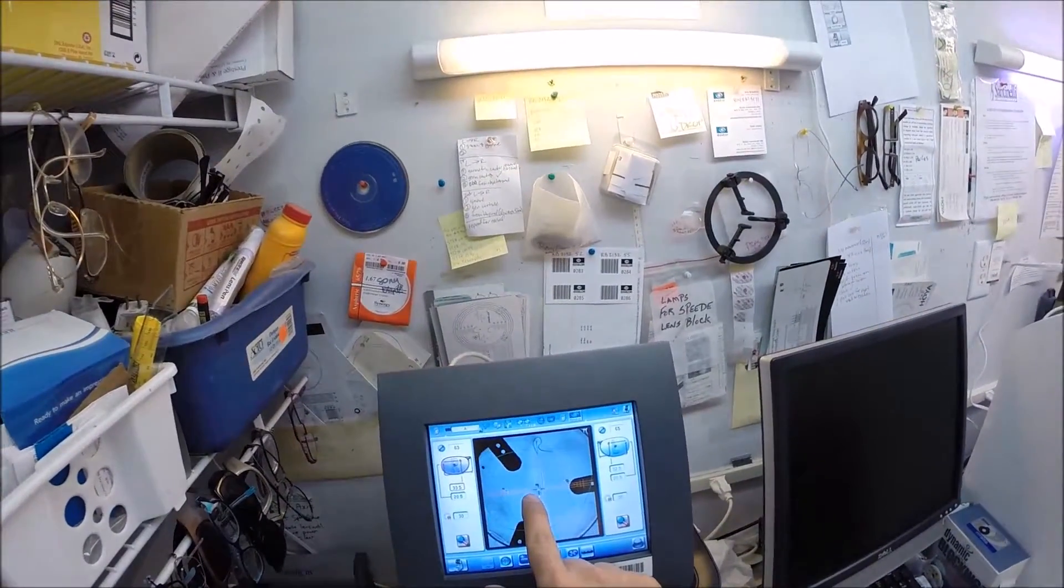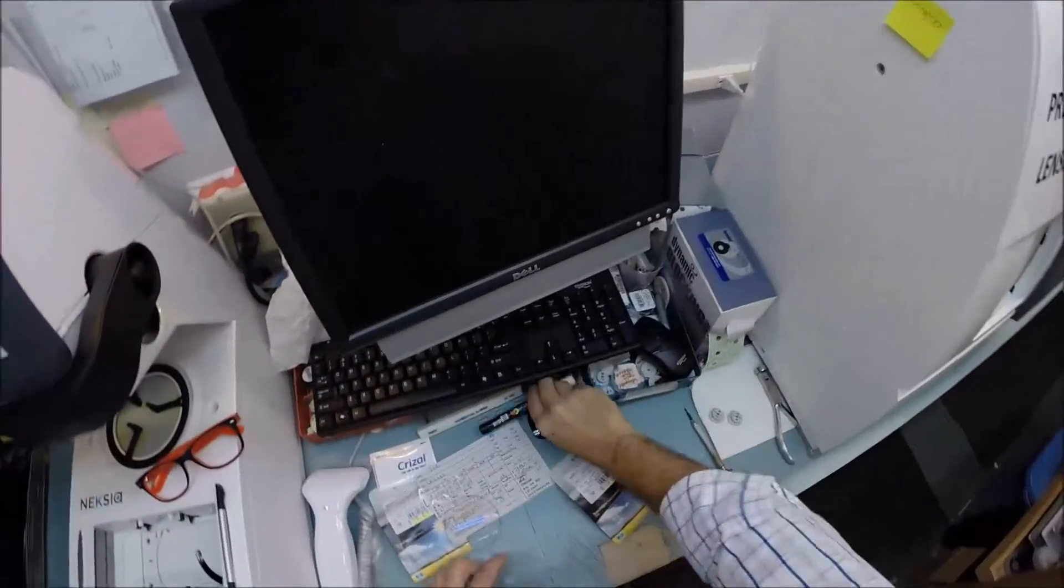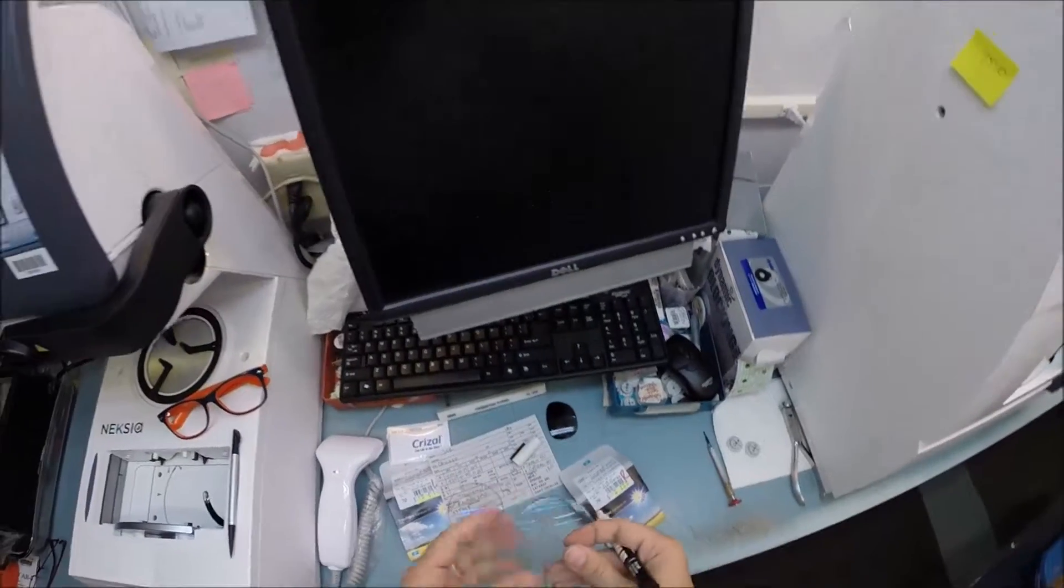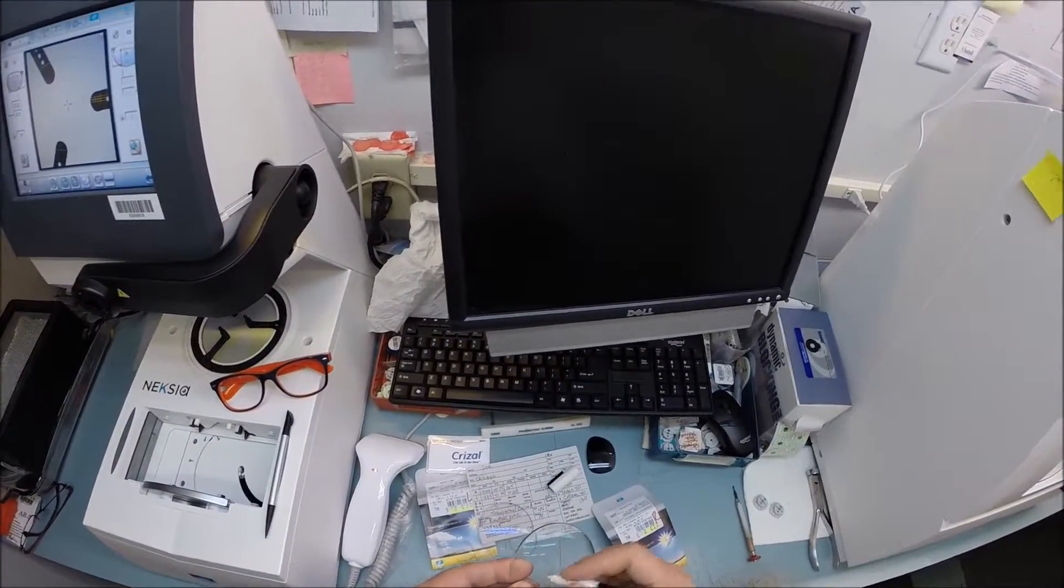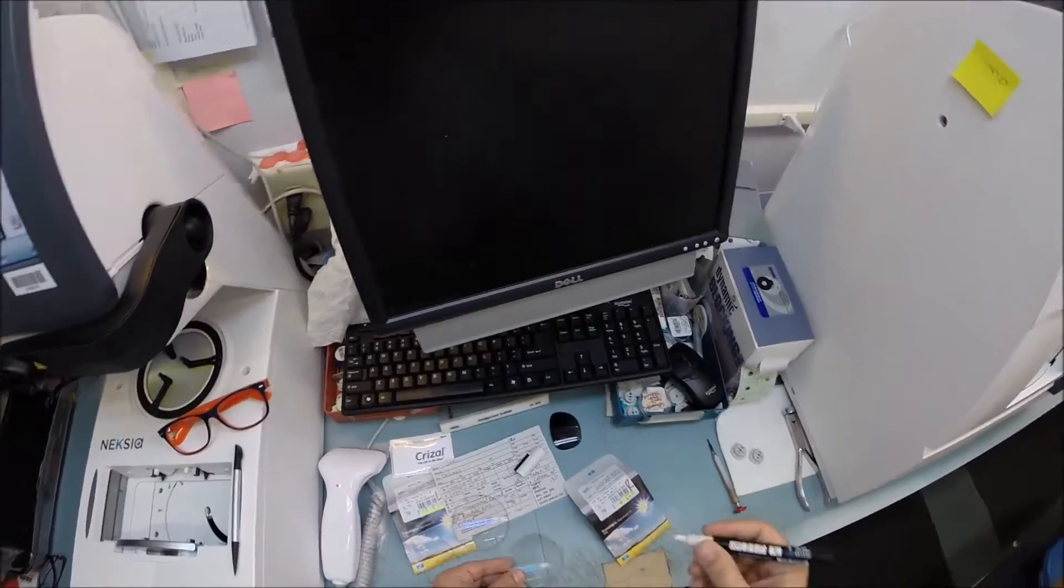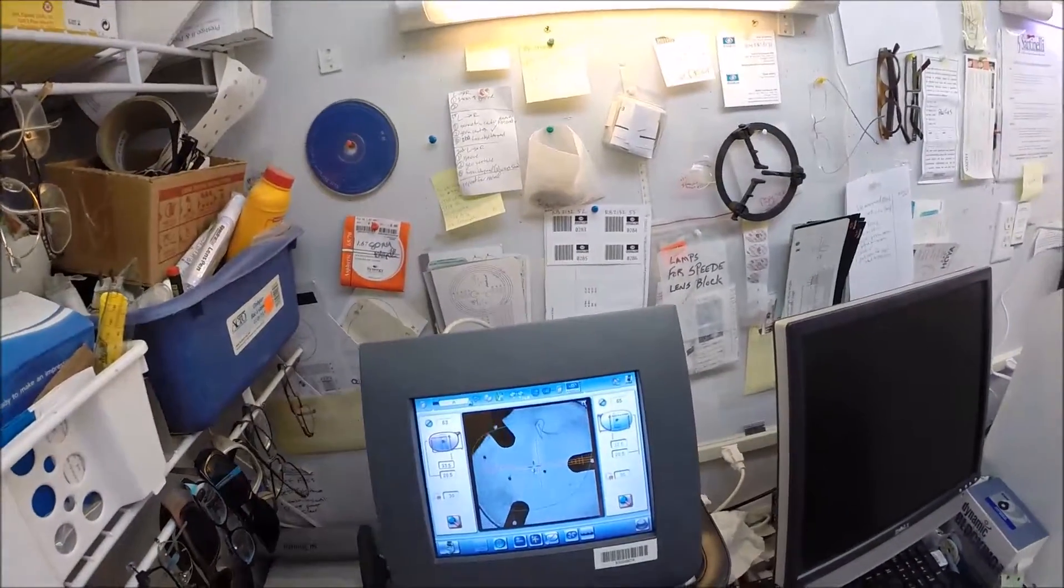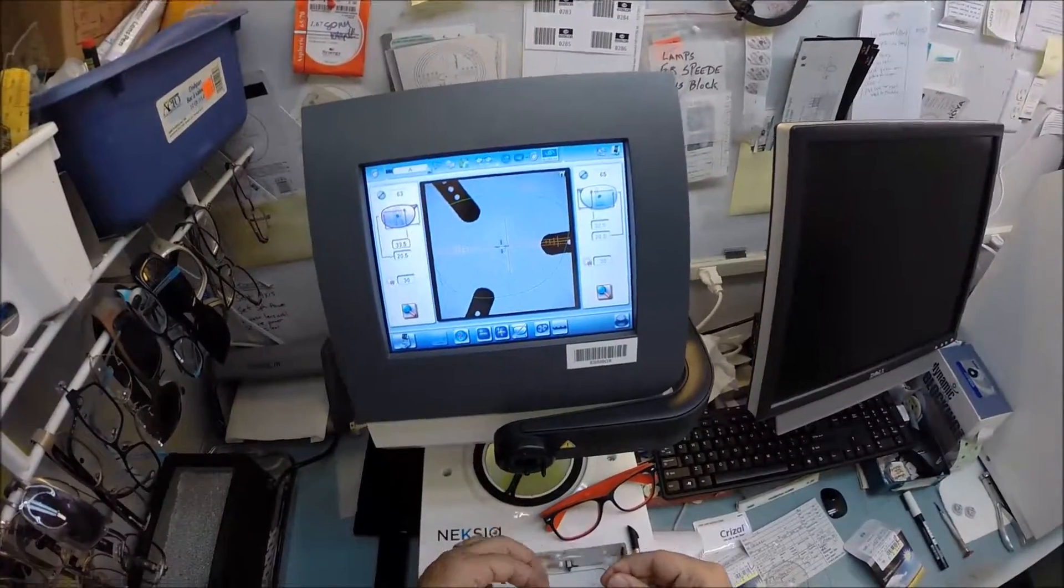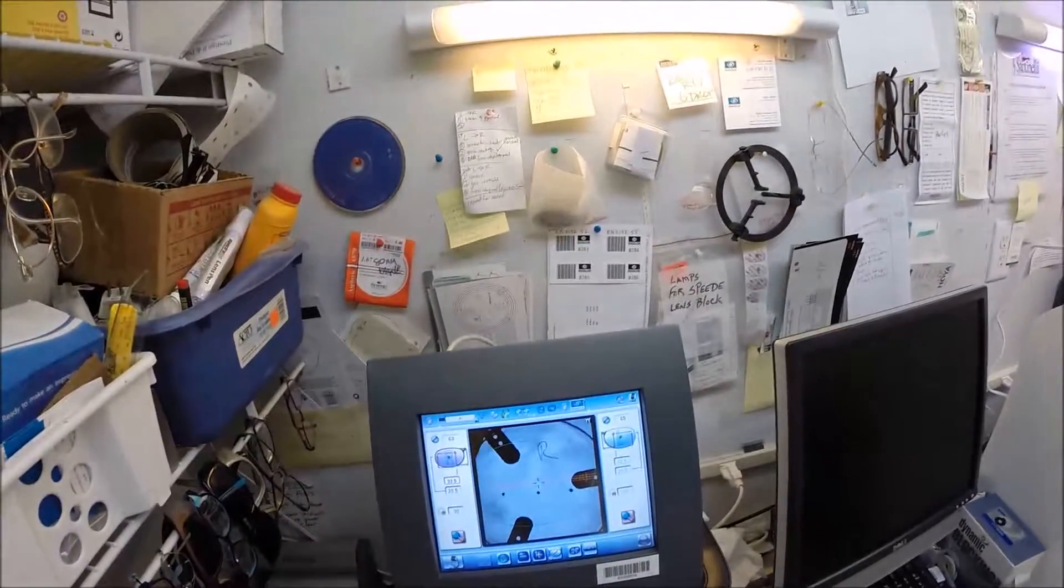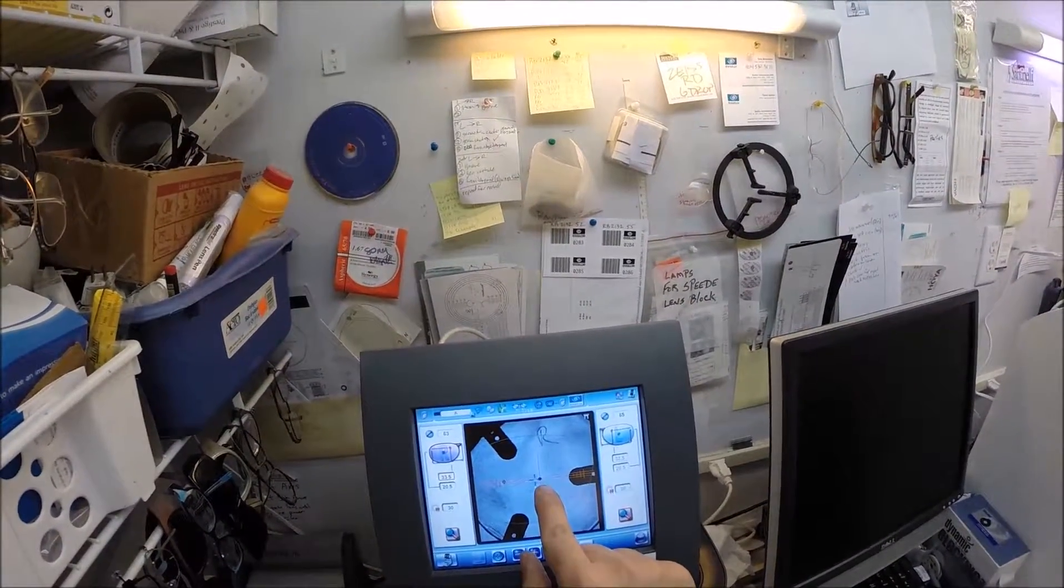I'm going to take your right lens. Let me darken these dots for this first one so you can see what I'm doing at home. I've actually got a little bit of white ink that shows up very well on the computer. Now you can see them.